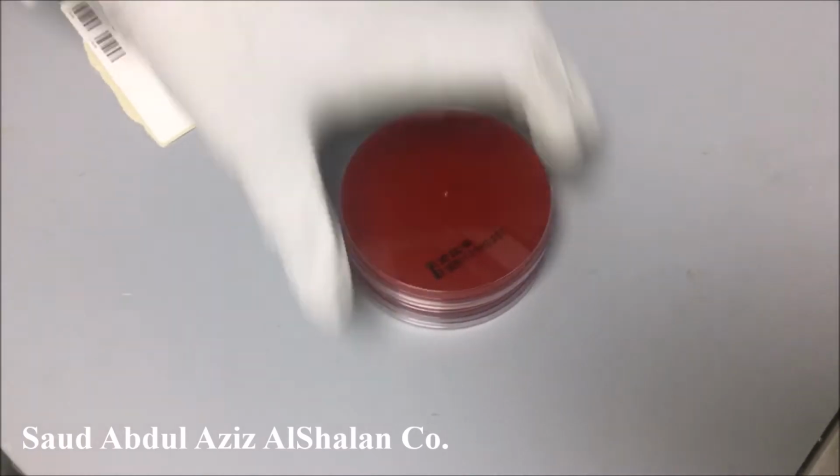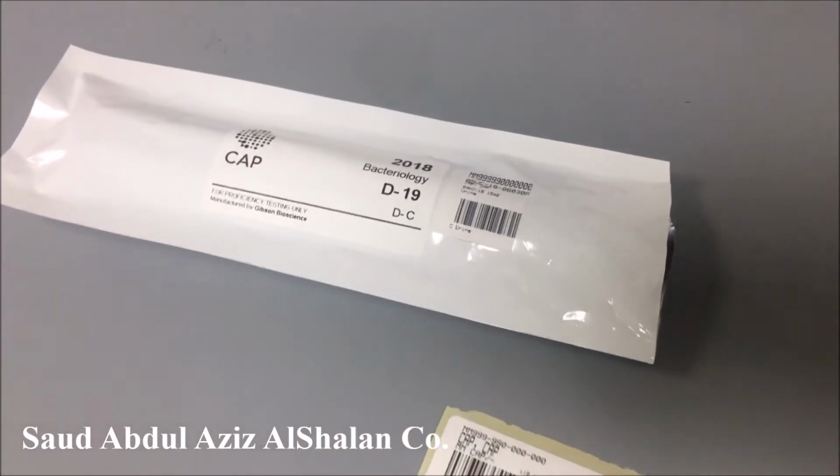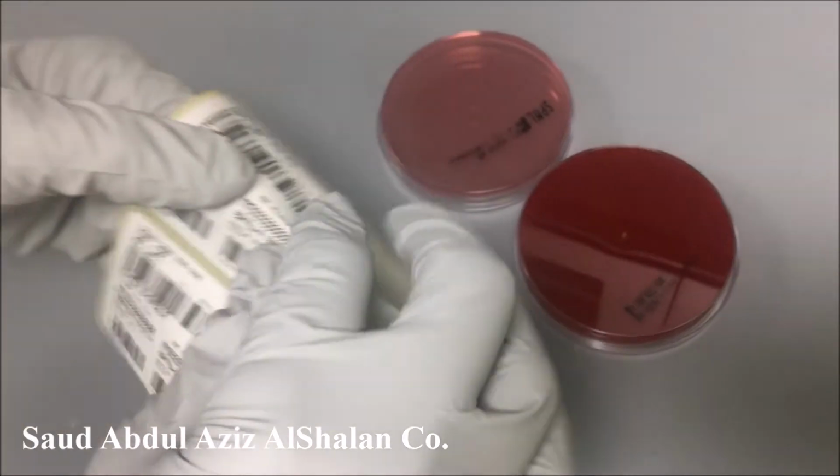Now we will come to the next specimen, which is urine. Our procedure: we are processing urine on blood and MacConkey. We will label it as usual.